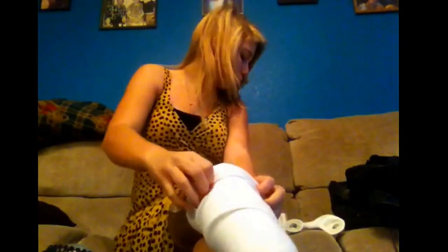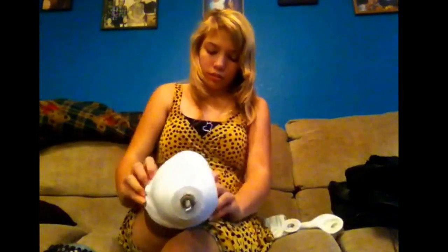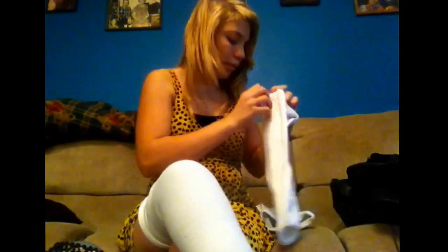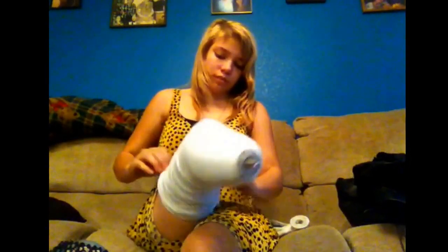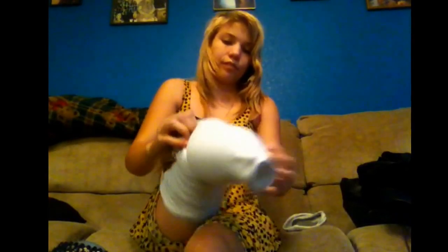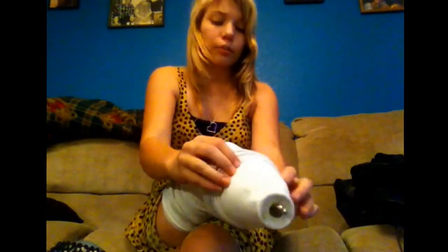I've got quite a few socks now. I picked a bad day to wear a dress for the video — I just got home. There's a five-ply, a three-ply, another three-ply, a five-ply, and a three-ply. That's nineteen ply worth of socks. I just need two tens and I'll be fine. I hate putting on so many socks.